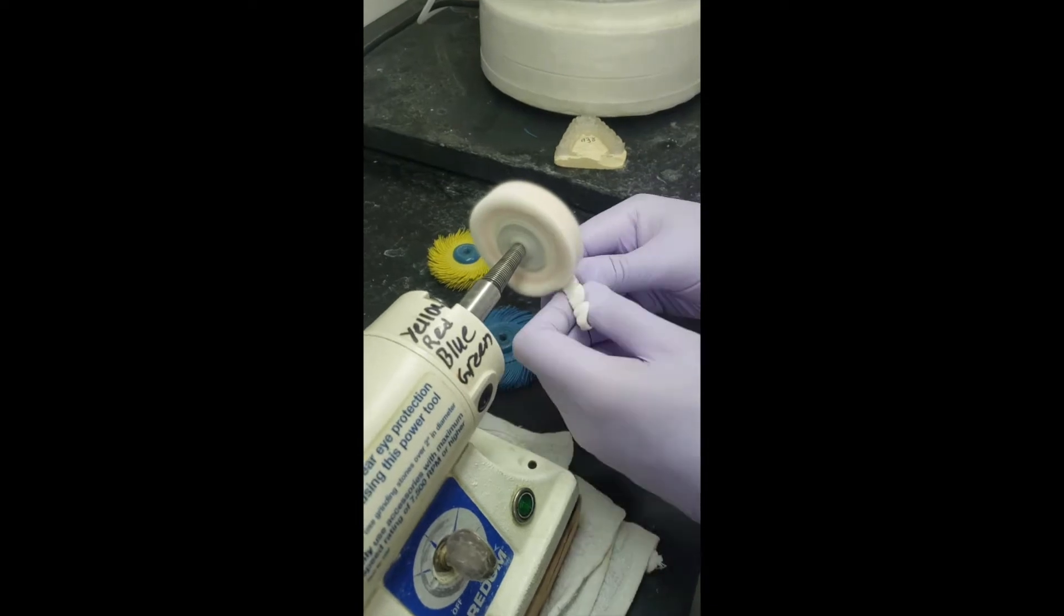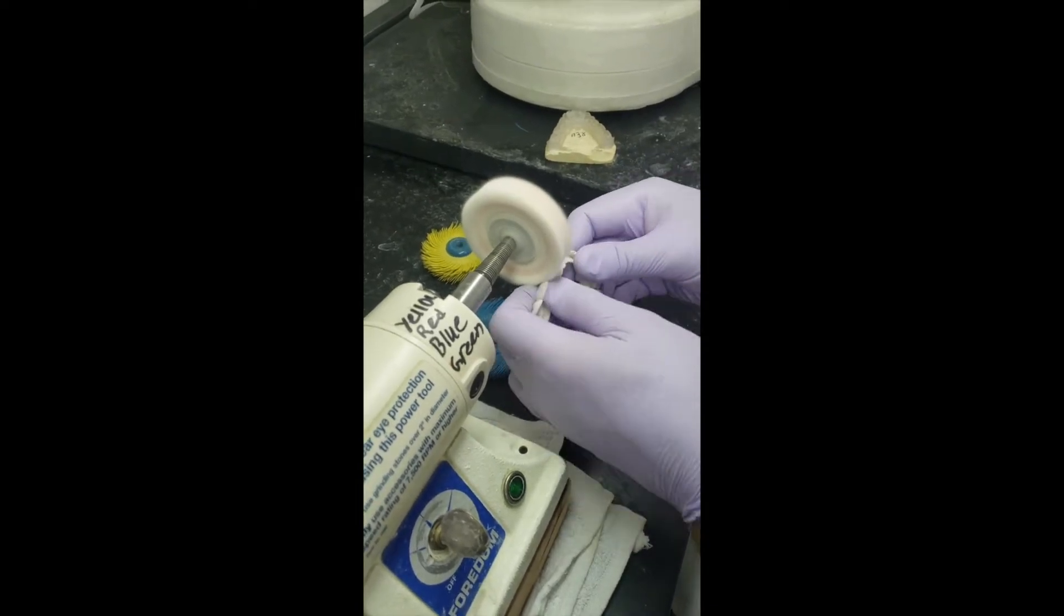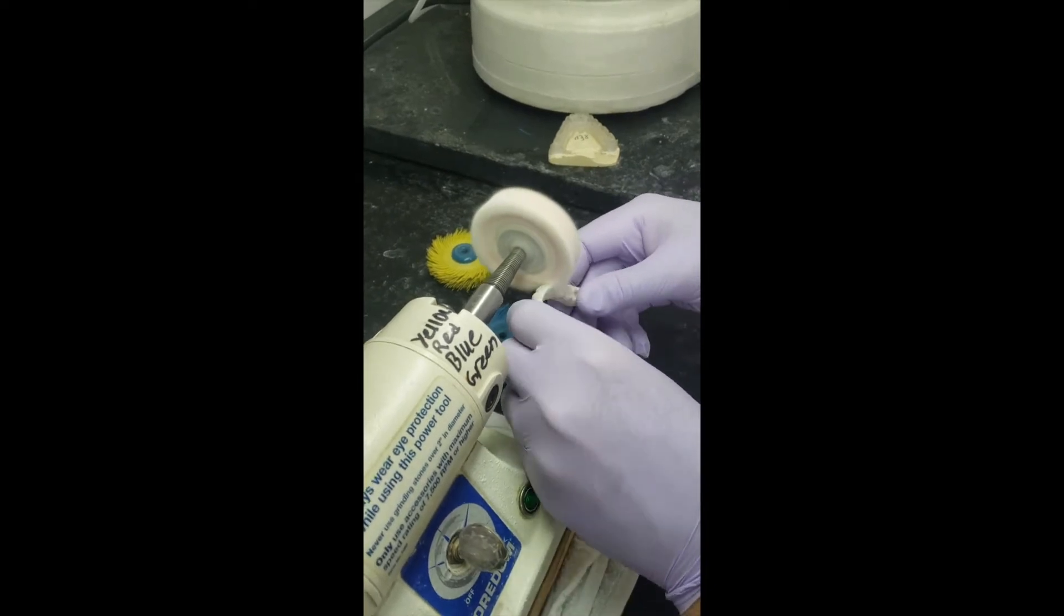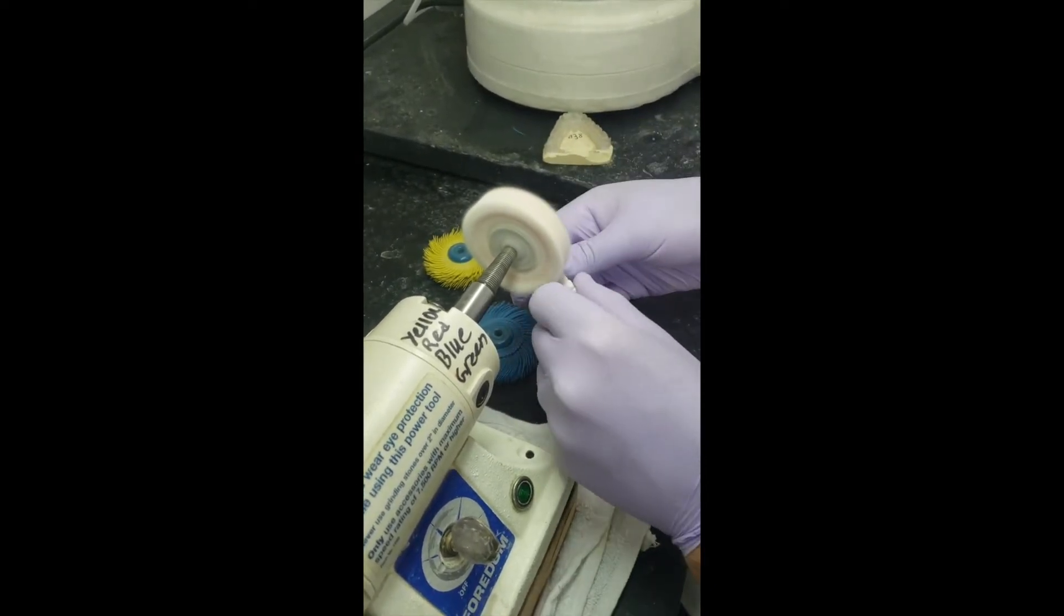Then move down, hit it at angles and go over that surface. Going from the lingual up and then the occlusal down.